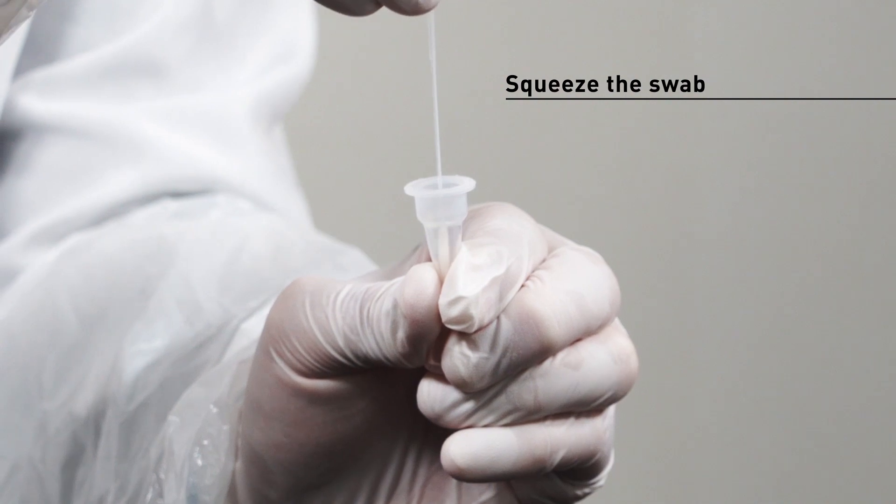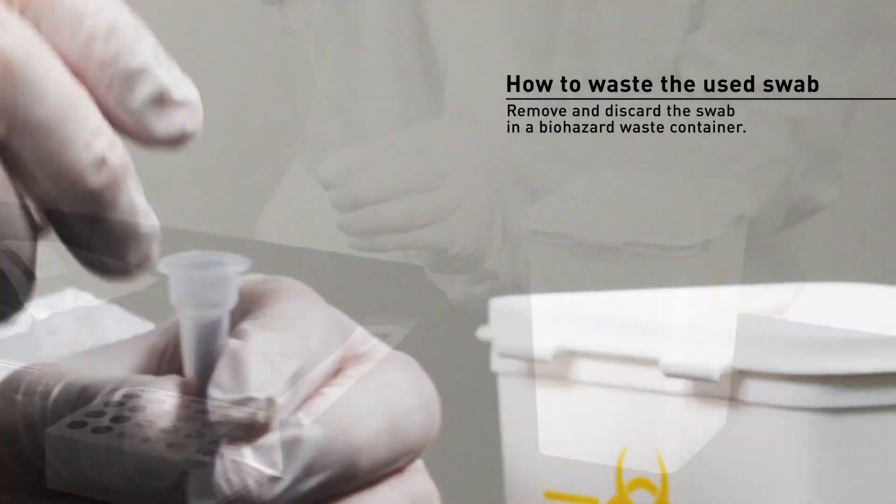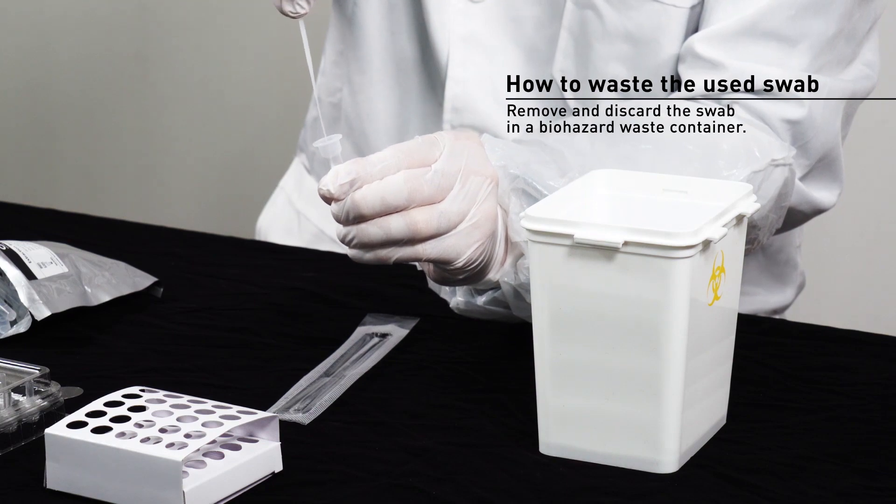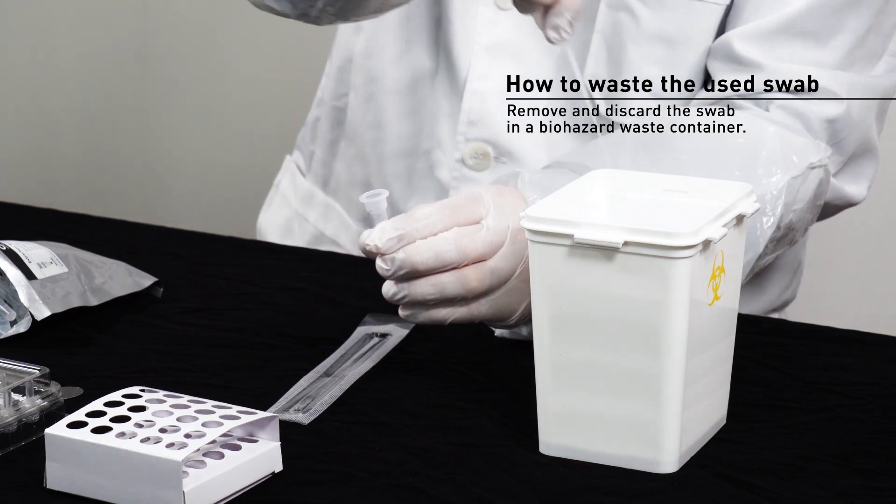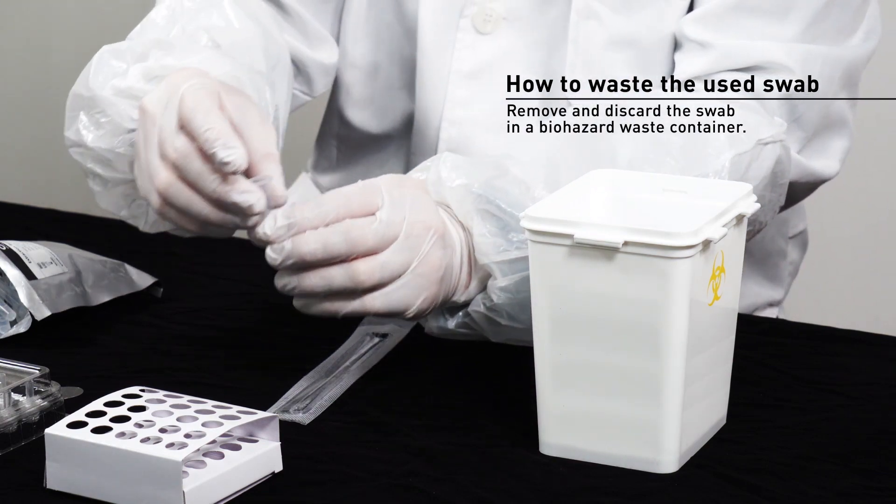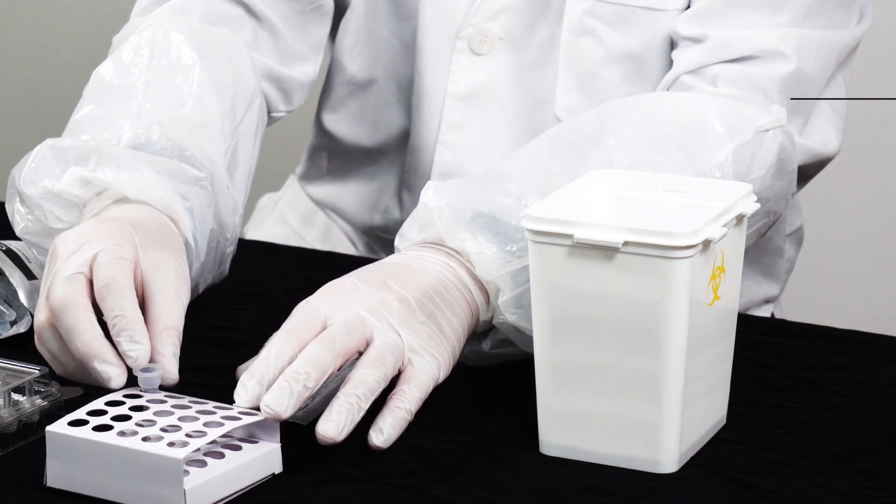Press the side of the extraction buffer tube to squeeze the swab. Take out the sample collection swab. Used swab is classified as infectious waste and should be disposed of properly in accordance with the relevant regulations.